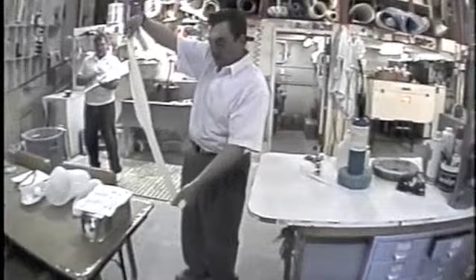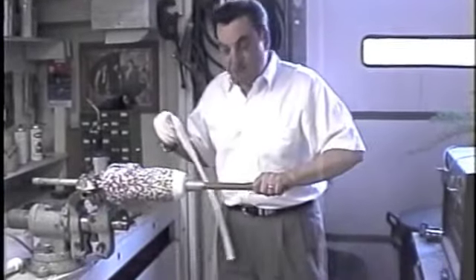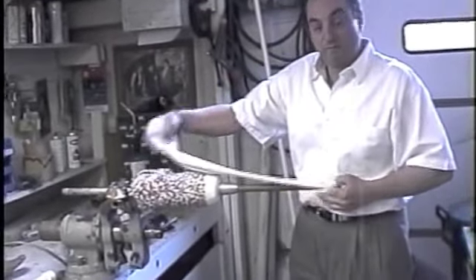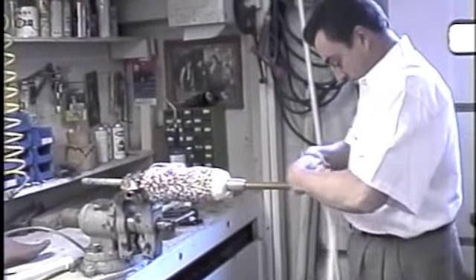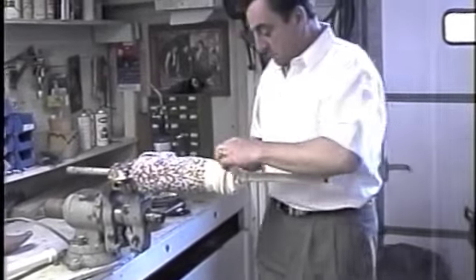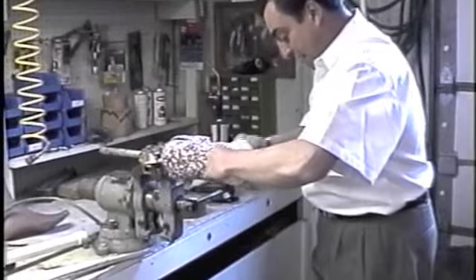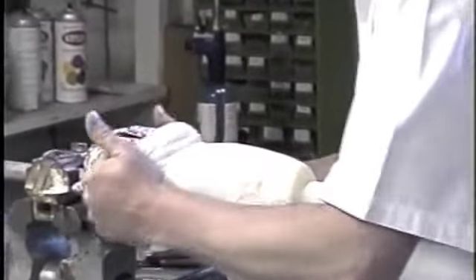Now it's been trimmed — turn it inside up and lay it up on the model. We've got the six layers of tape and the stockinette trimmed so it fits snugly over the mandrel. When you lay up your stockinette, just like anything else in this industry, keep the lines nice and straight.